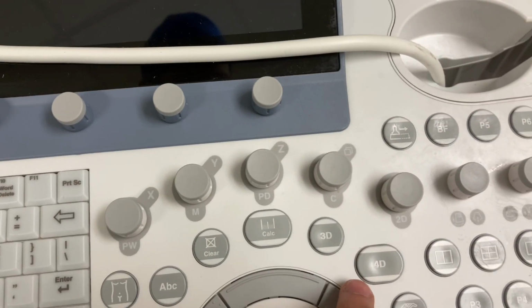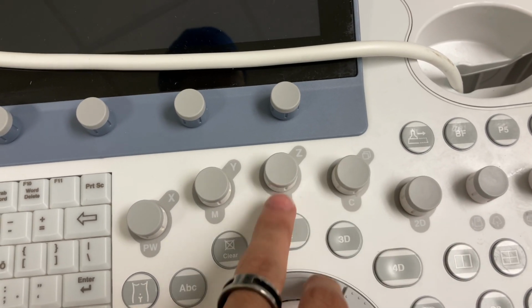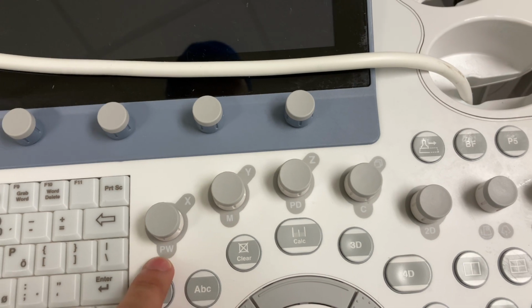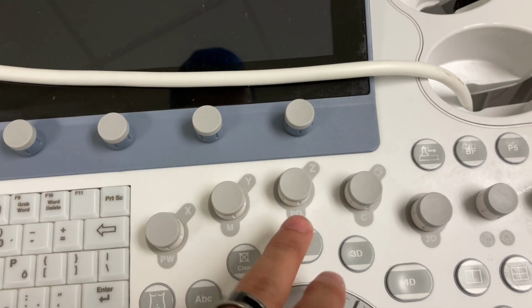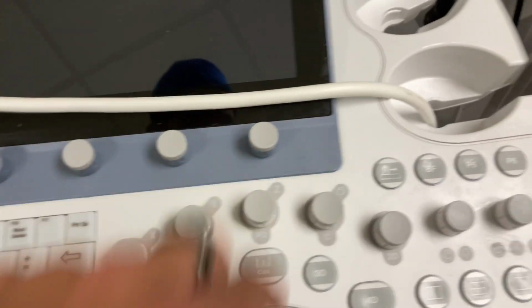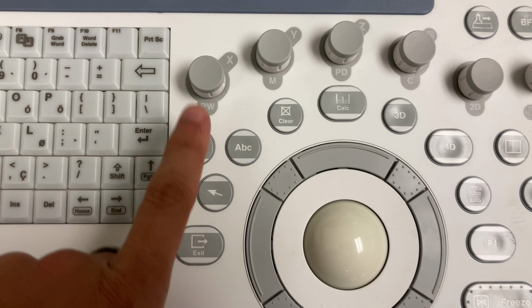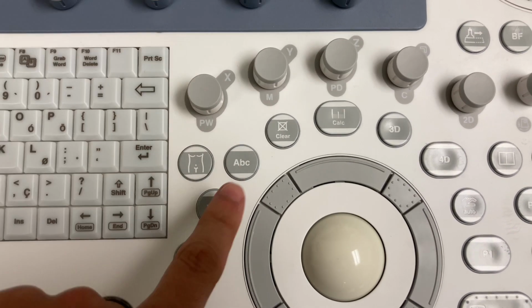2D, which is what would be B mode on the Logiq 9, color, power Doppler, M mode, and pulse wave Doppler. So this one actually has one of the wheels. The power Doppler has its own wheel. And on the other machine, I forgot to mention, there's also a button for body marker. You press that, and depending on the setting you're using, you can have like a little indicator on the screen. If you're doing a thyroid, it'll have like a little animation of a neck and where the thyroid is. I don't use that at all, but some people do.